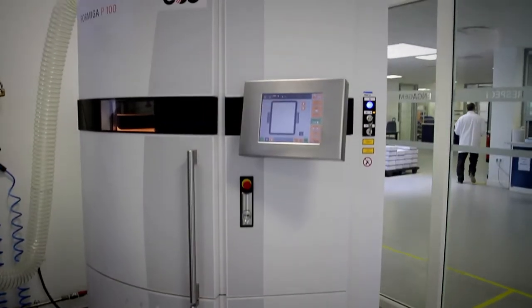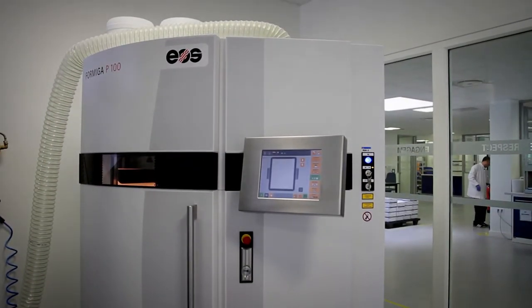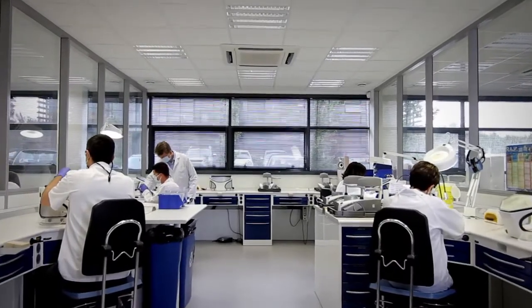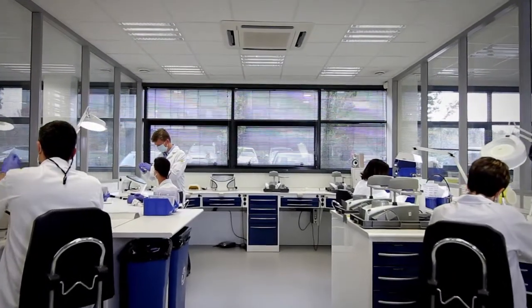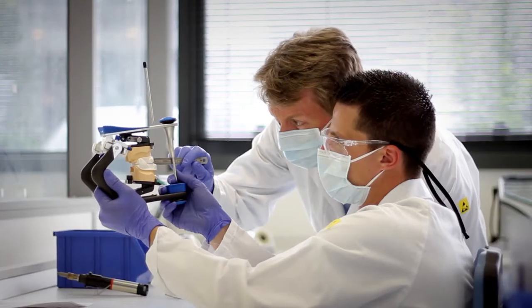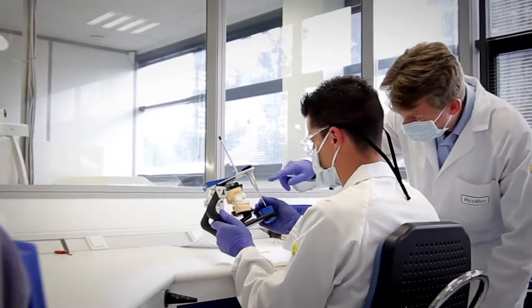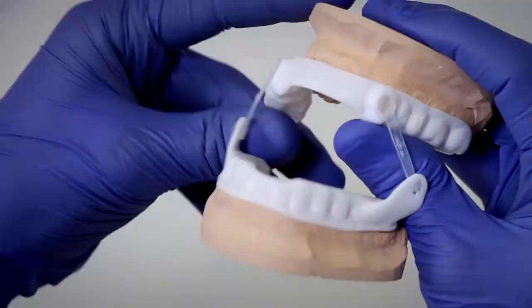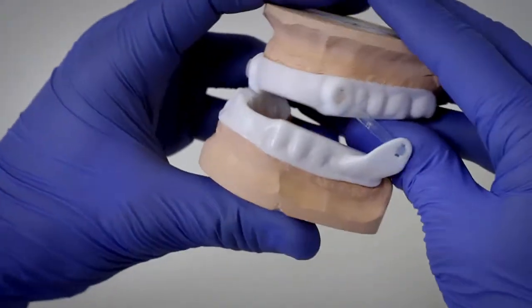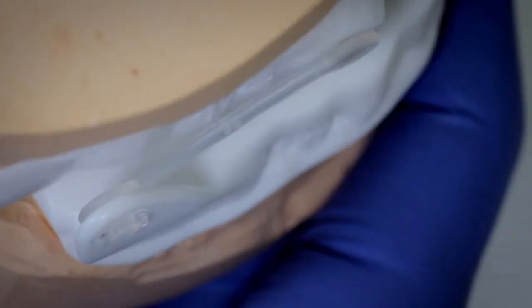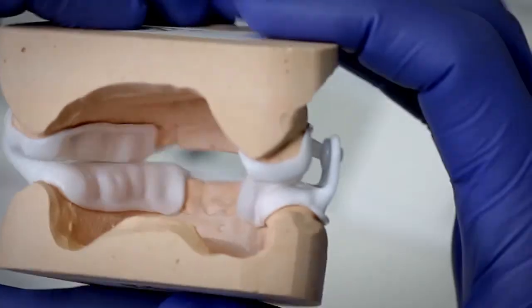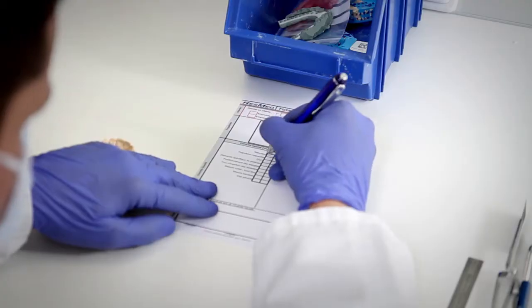The whole process of production lasts up to 8 hours, whereupon the devices undergo final treatment and rigorous final control. As every device is individually numbered and needs to go through all the steps of the final check-up, this proprietary process is what makes every device provided to you and your patients unique and suited to their individual needs.